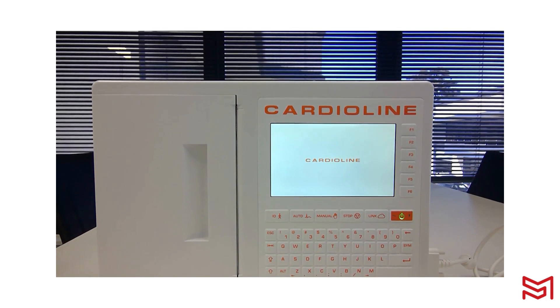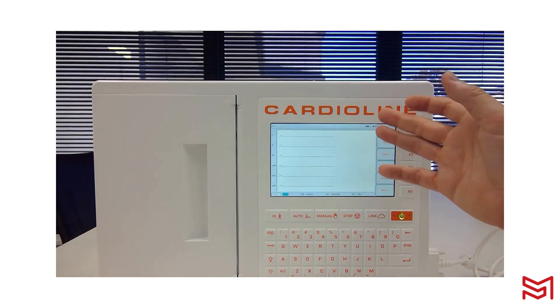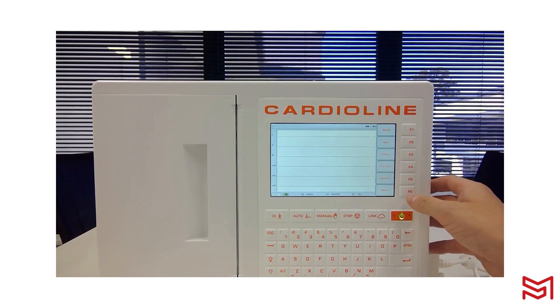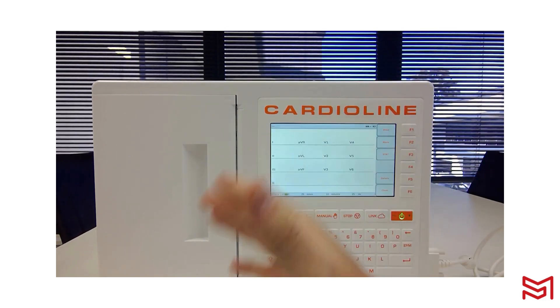Power your unit back on and the settings will always be the new standard. As I mentioned, we previously had 12 by 1 — now we have 6 by 1. If I capture an ECG now, notice that it was automatically printing before, but now my print preview has changed and the device isn't printing automatically.